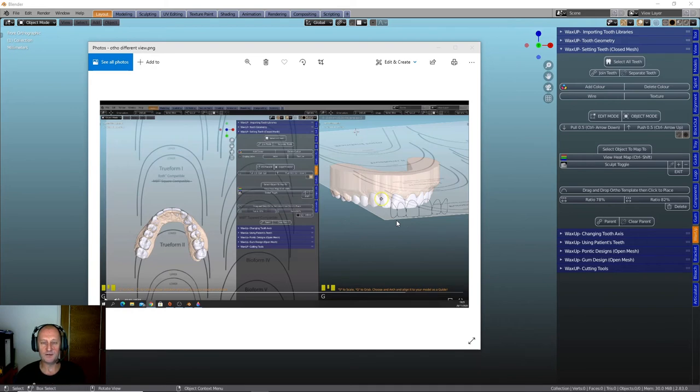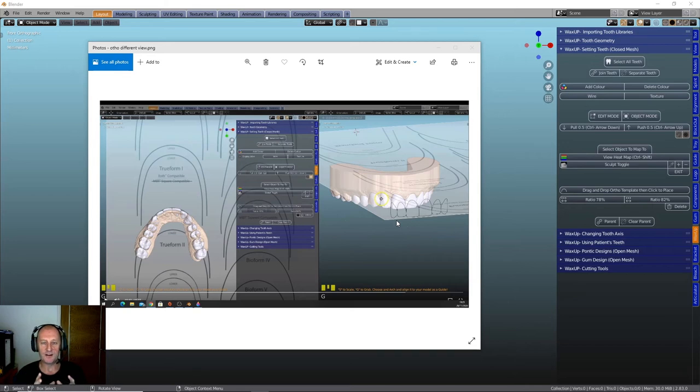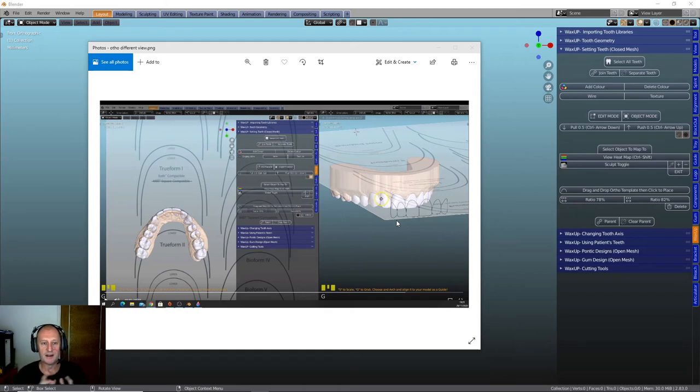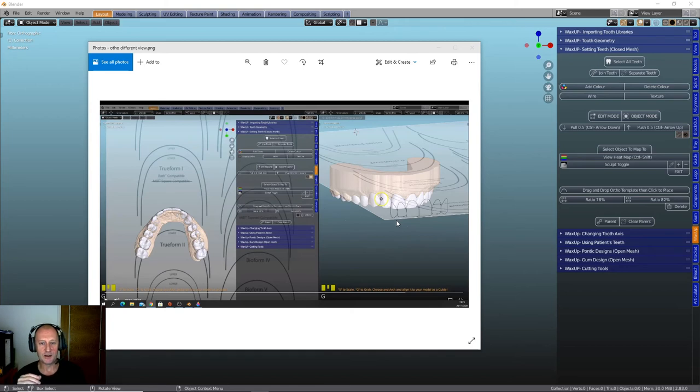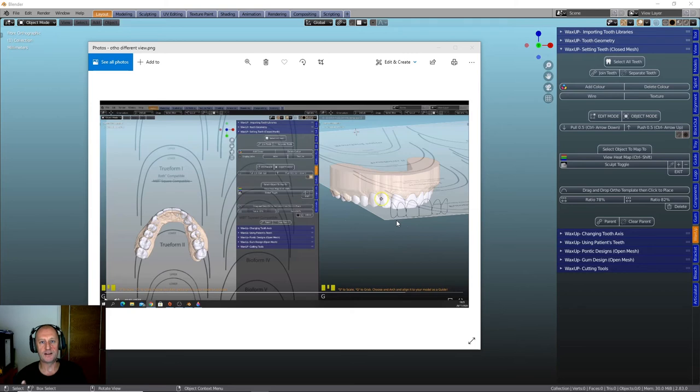There you can see on that picture there the ratio that you brought in. So you can overlay the ratio from the labial side and then you can look from the occlusal side and see how well your teeth fit within that arch. Me, personally, I don't do an awful lot of that type of work. And as I was playing around with it, there's an awful lot of other things you've got to think about when it comes to occlusion and where the lowers are and all the other bits. But I can see the potential there and I'm sure this is going to really get some people's goat going because this sort of thing, it's very clever. Very clever little feature. So, as you can see, there's a lot of tools to help you put the teeth in the right place.